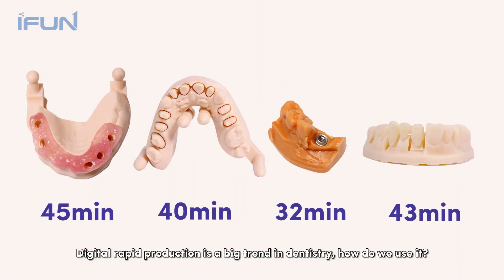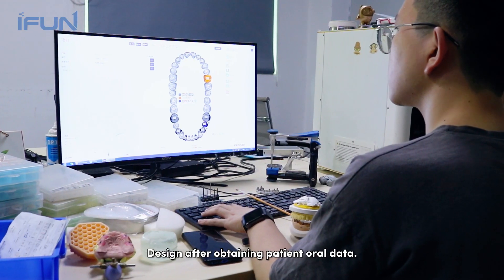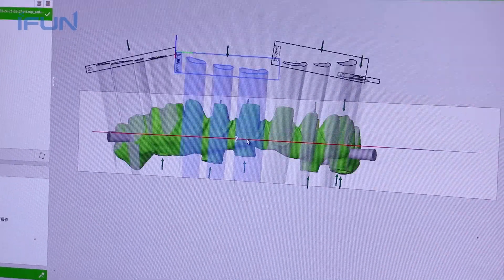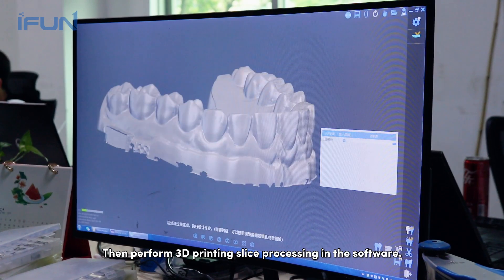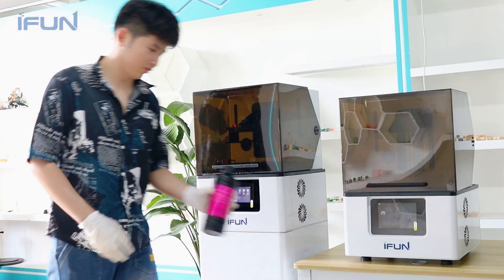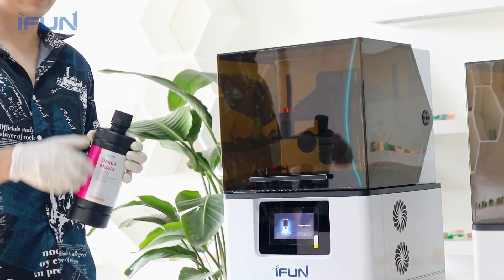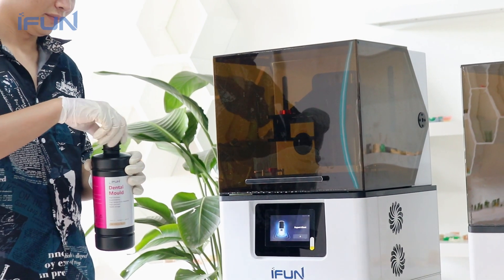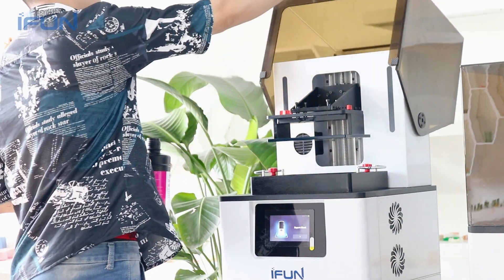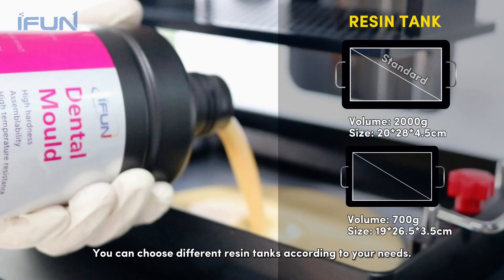Digital rapid production is a big trend in dentistry. After obtaining patient oral data, we design the model and perform 3D printing slice processing in the software. Pull the resin into the machine — you can choose different resin tanks according to your needs.